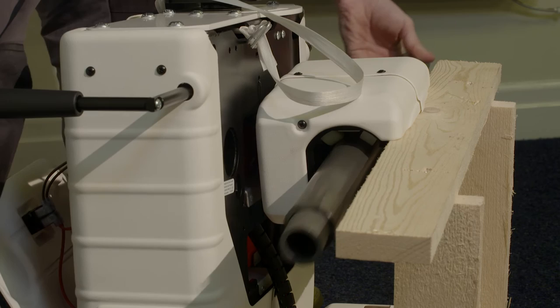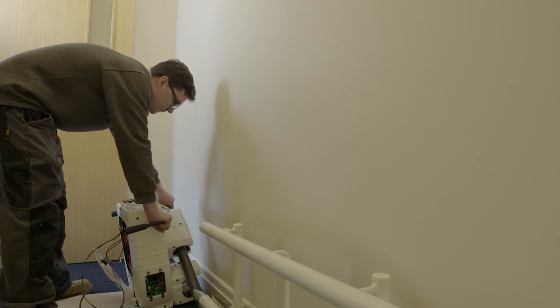Next, insert the long loading bar into the top skate of the carriage and insert the small cone stopper into the bottom rail tube.